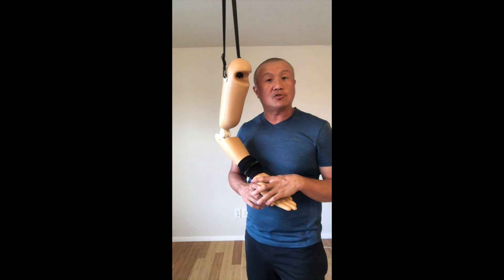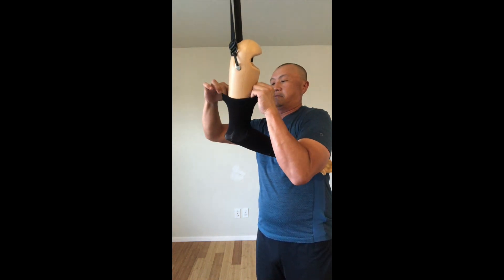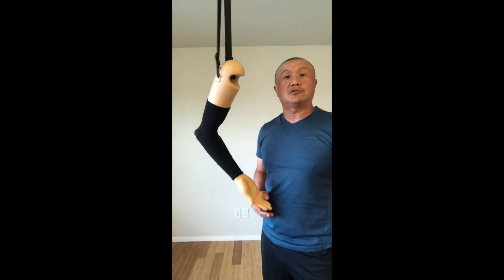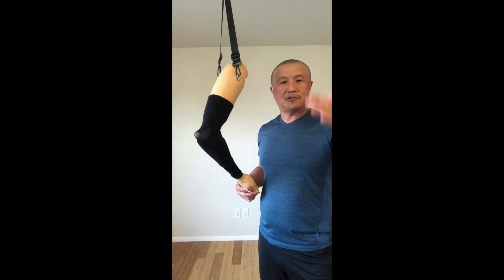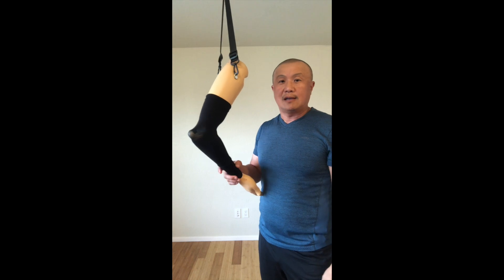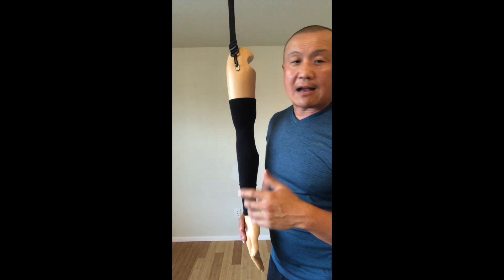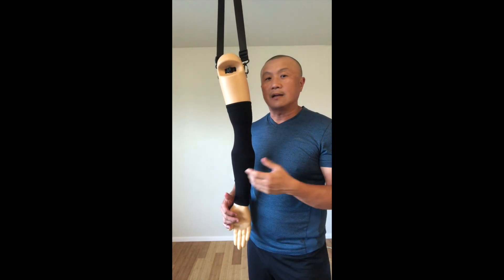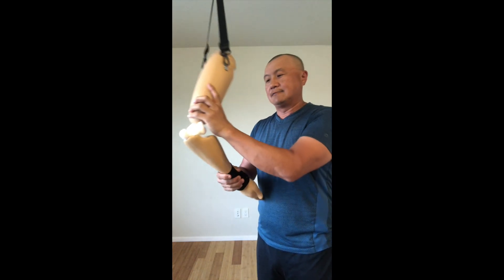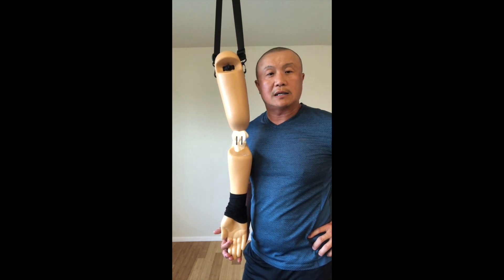After students get used to that, I use this simple sleeve to cover the area, give a demonstration of what happened, and then ask what would you do. As a clinical professor you have a checklist sheet — you can test the skills. If they have to reduce it, you assess whether they know how. That's how I recommend using this model. It's very useful — you can feel how it goes back in, as many times as you want. It's $1,500 plus shipping costs.